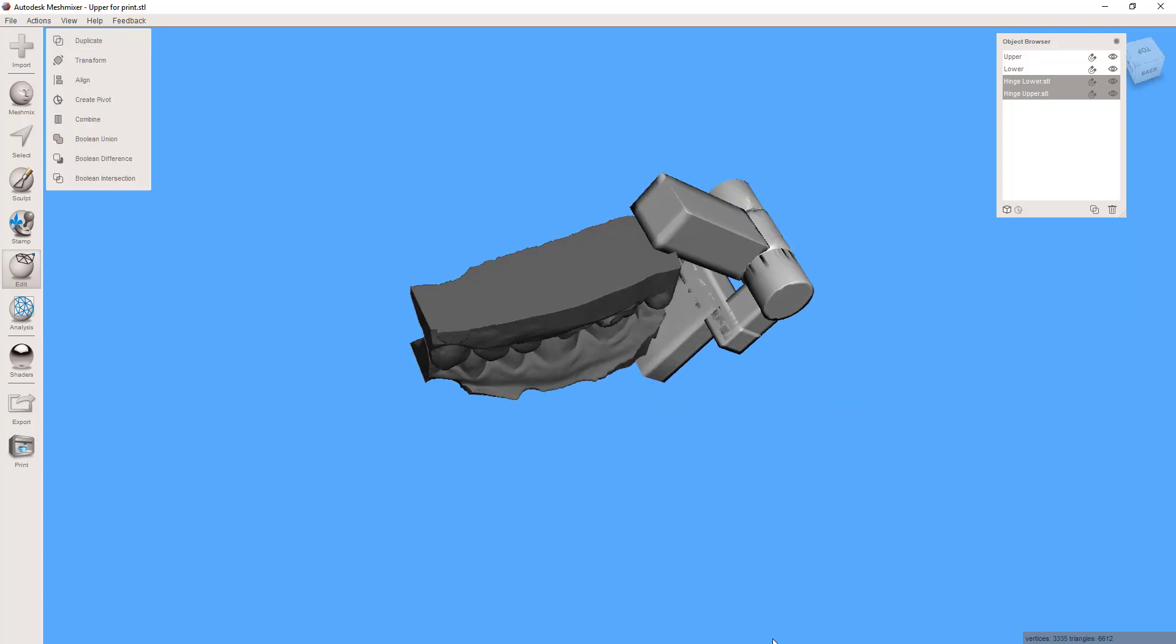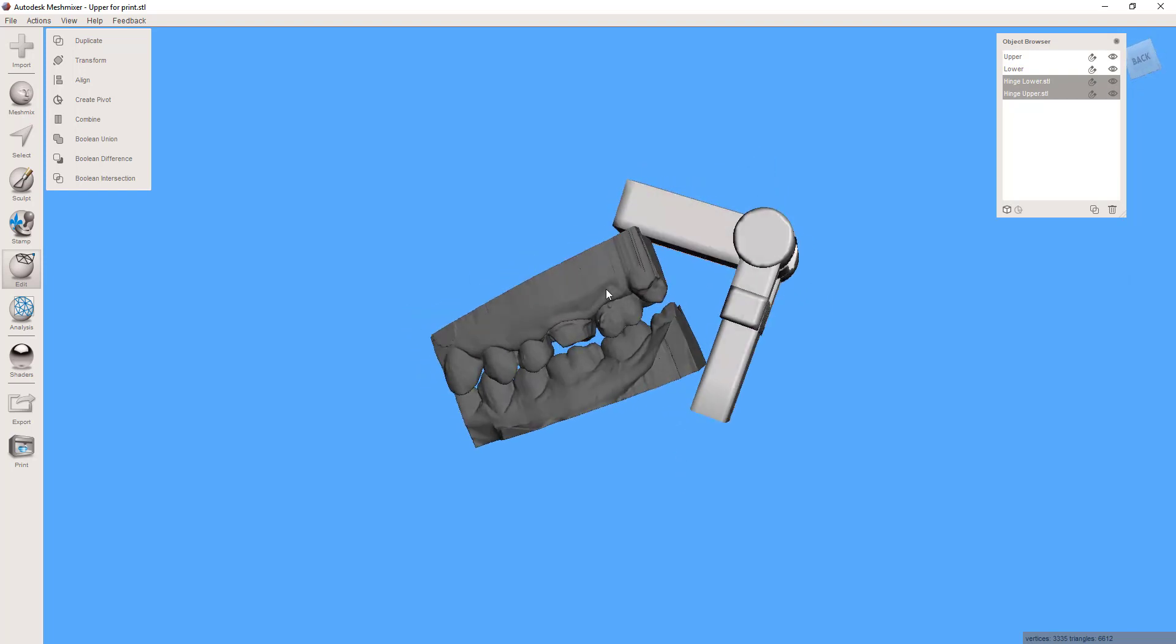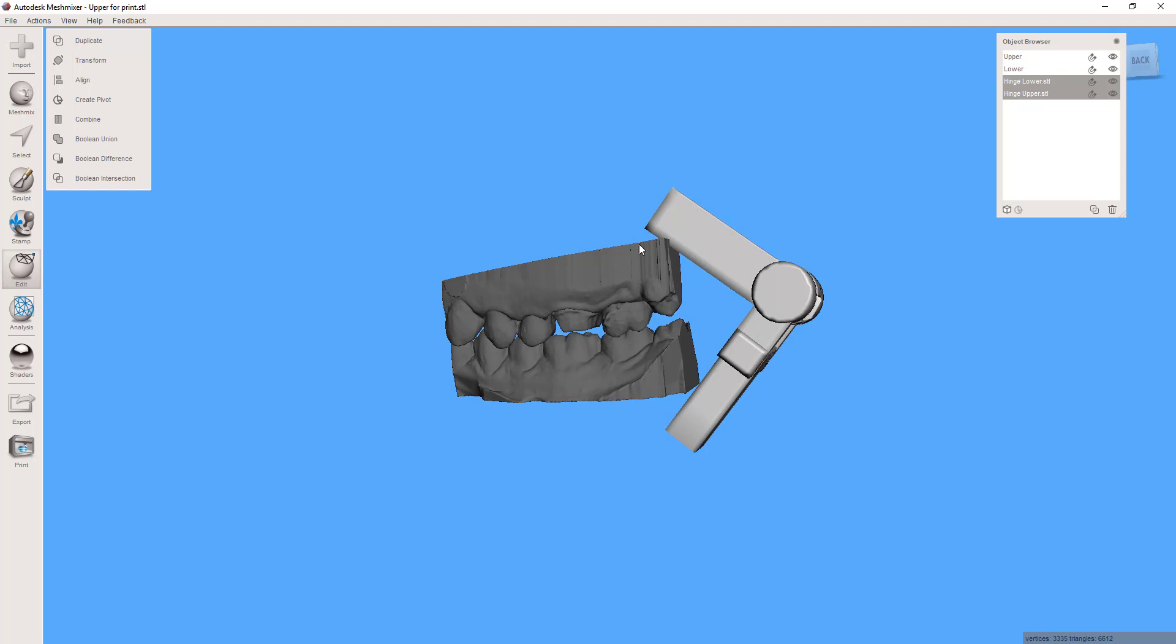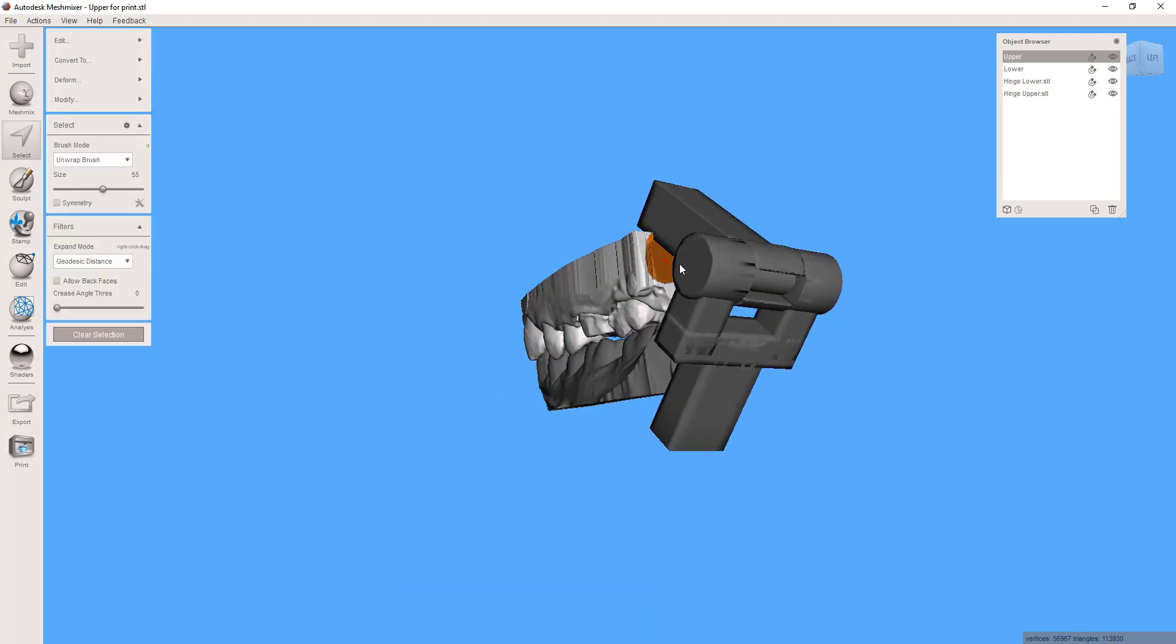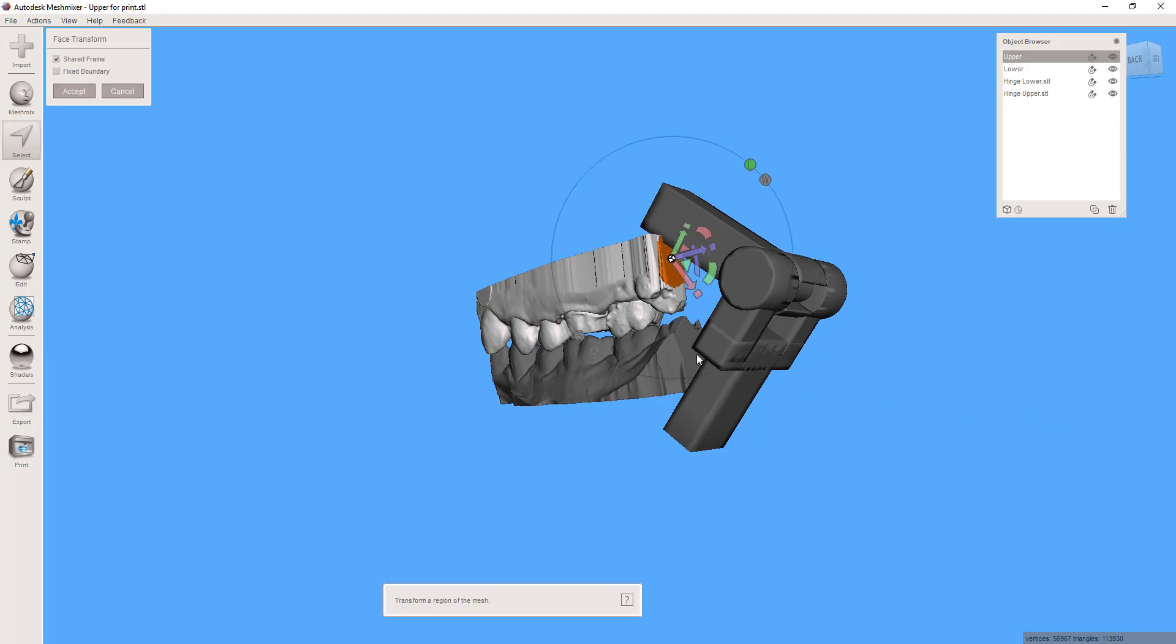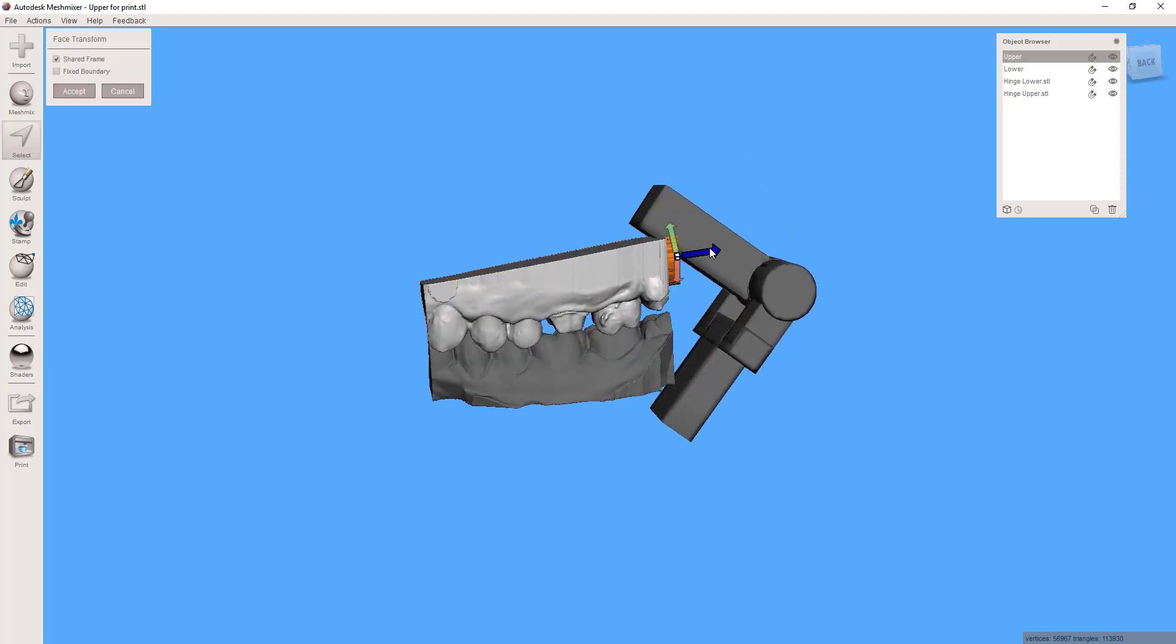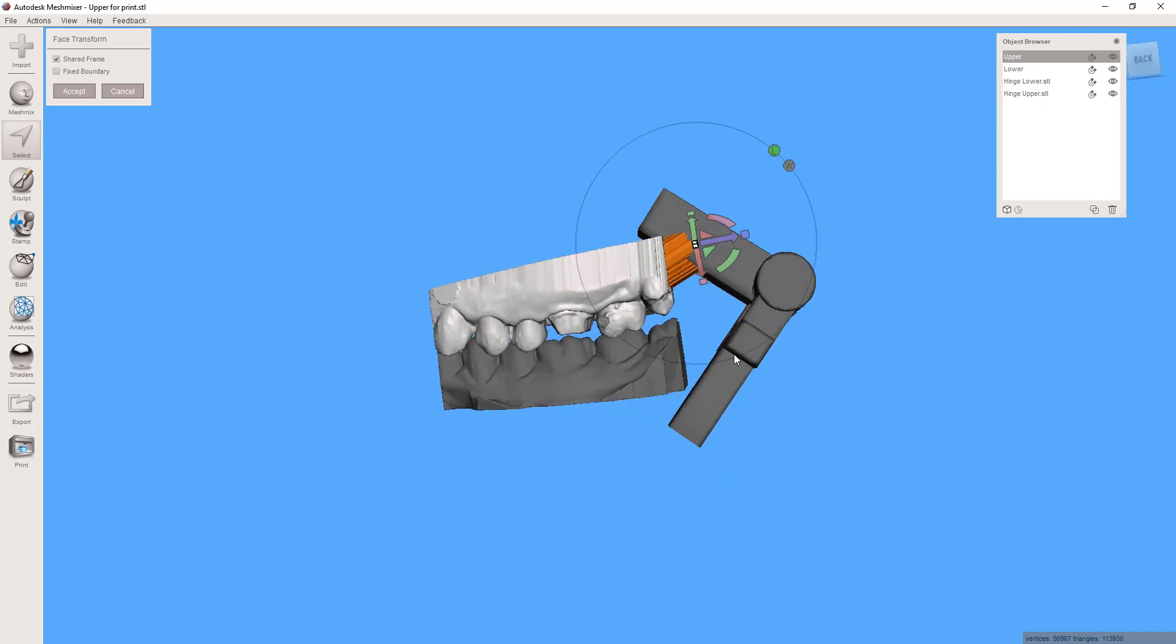So accept that. They should be centered as you see here and now all that's left to do is connect them. Now I could connect them by just simply dragging this in until the models impinge into one another enough, but my preferred way of doing it is just to use the select tool. Let's select a portion off of the back here and then just push T for transform and you can drag this backwards into the upper part of the hinge.